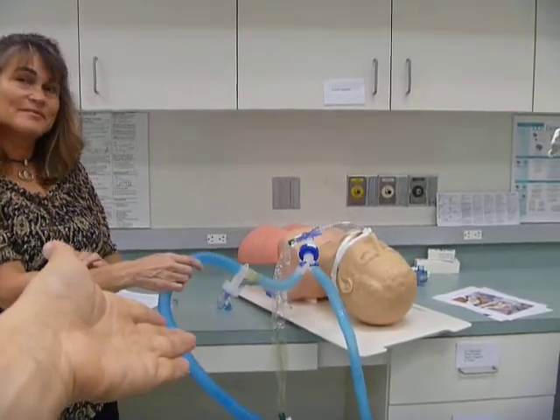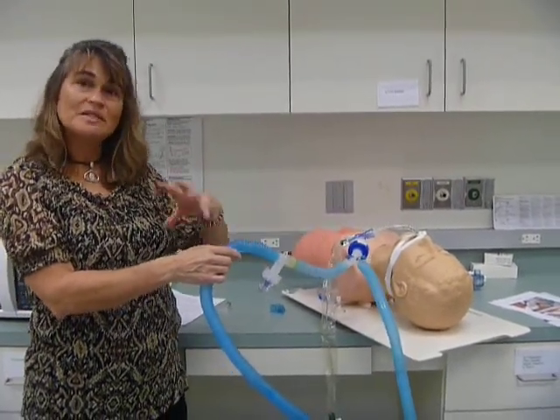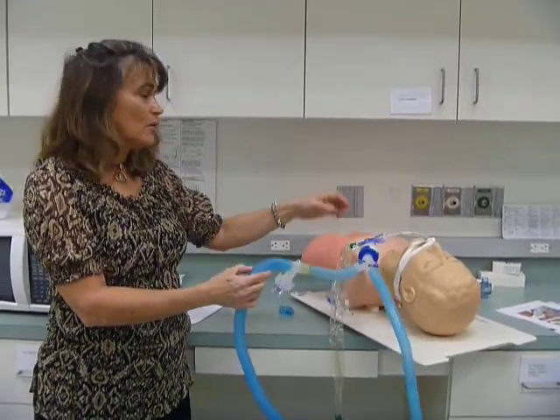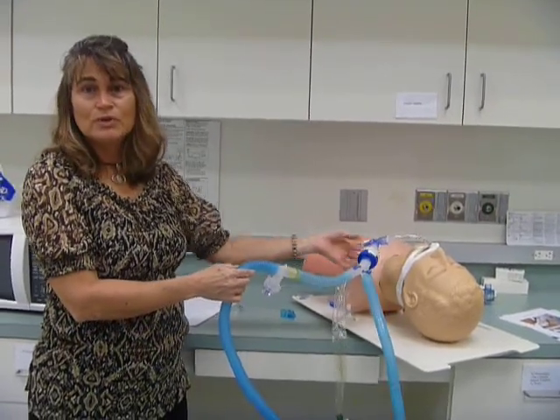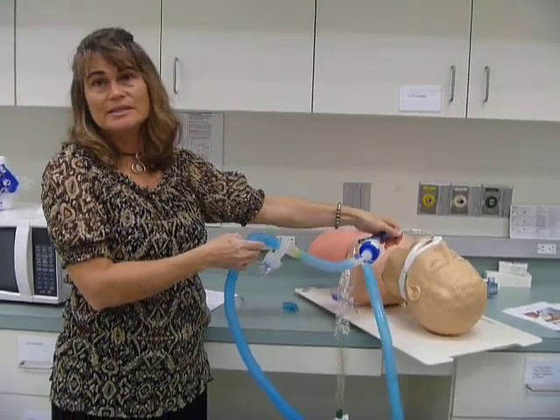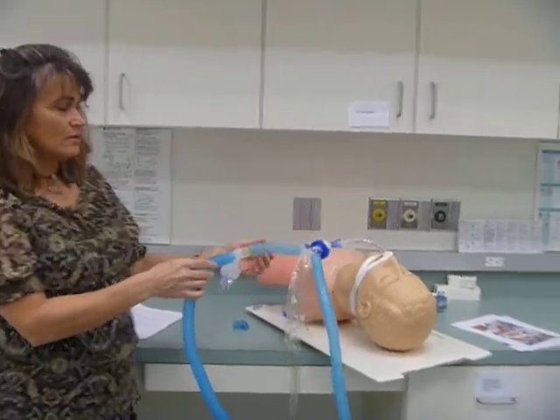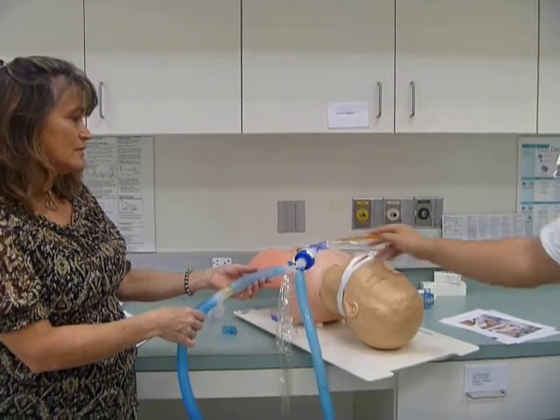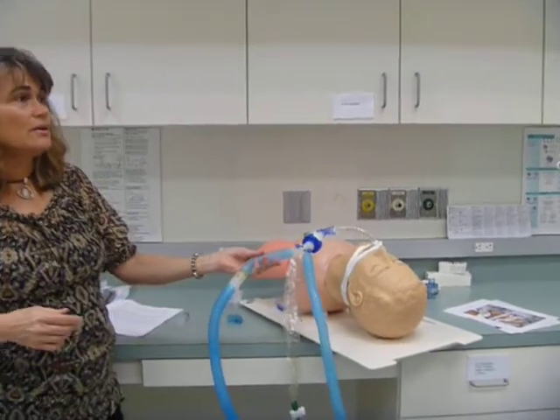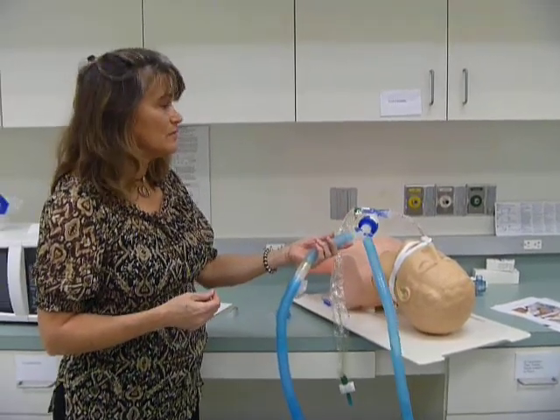How come the medication is delivered better at a further distance? The particles become suspended in the air better when they have a little distance to travel. When you're placing the adapter right at the endotube, the aerosol is being created, and then as it goes through the endotube, it immediately deposits on the sides of the endotube. It's a sharper angle, I think, also. From right here to here, it's a sharper angle to come traveling down. So here gives it some distance. That's true. Remember, there was something, the impaction? Yeah, because it will just hit like a wall. Yeah, that's true too. Okay.